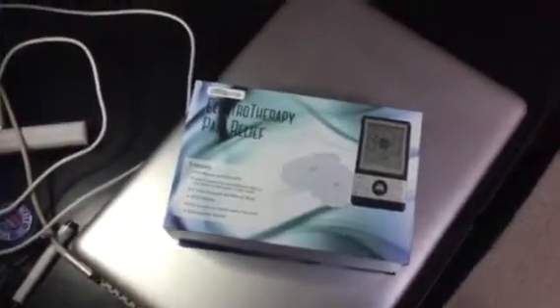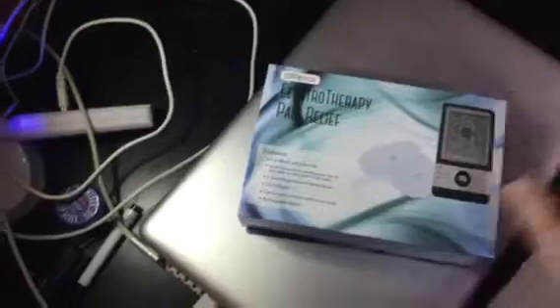I really did enjoy it. I gave it five stars because I really felt it deserved it. I received the product at a discount in exchange for my honest review, so let me go through here really quick what you get.